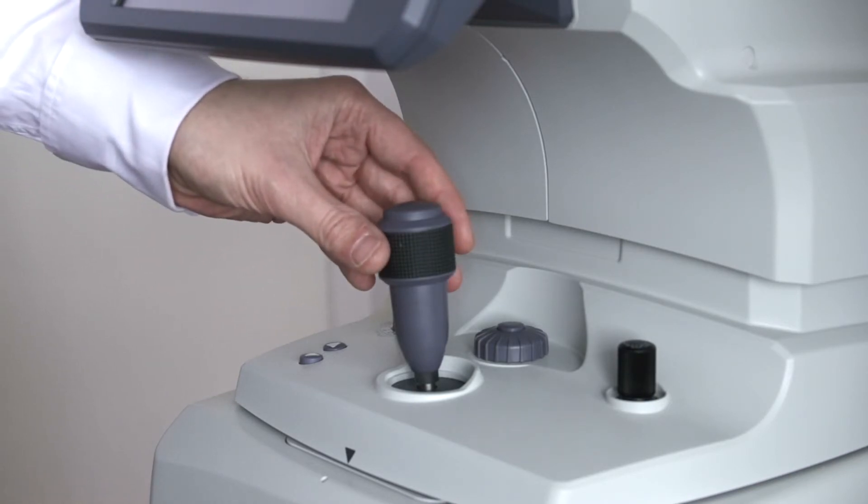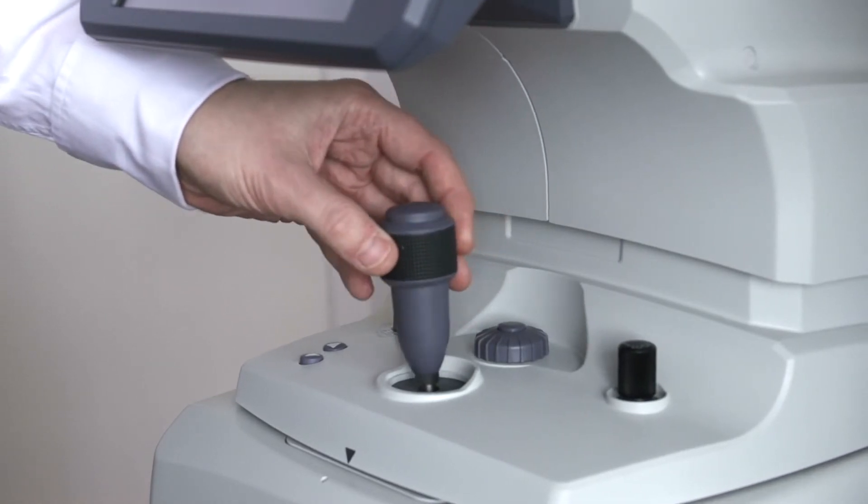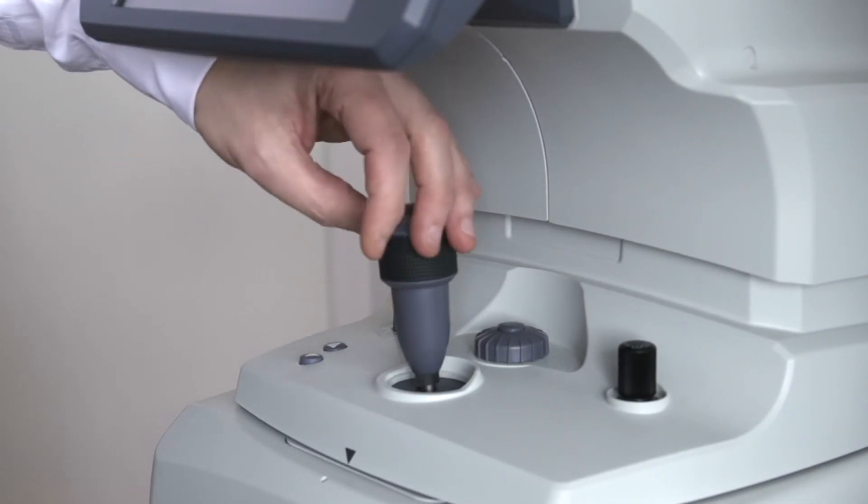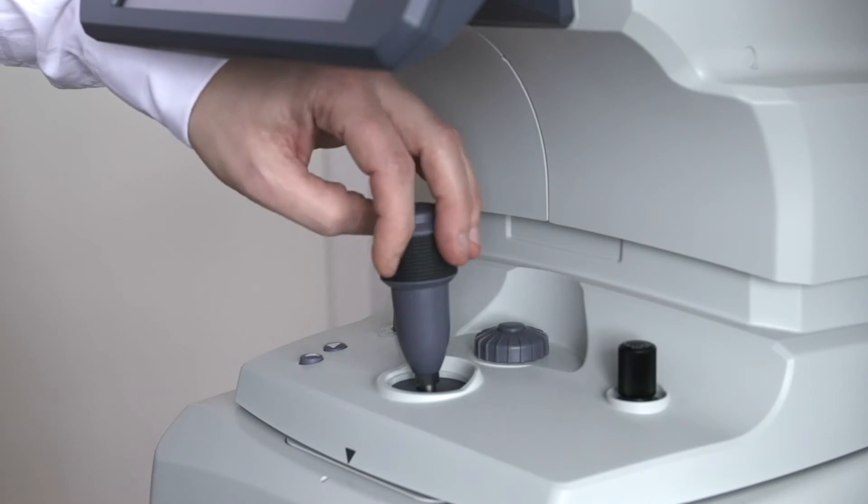The joystick is used to move the device left, right, forwards and backwards, and then by rotating the joystick moves the device up and down.